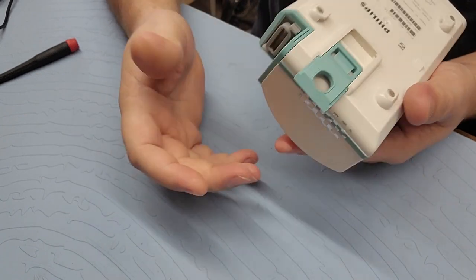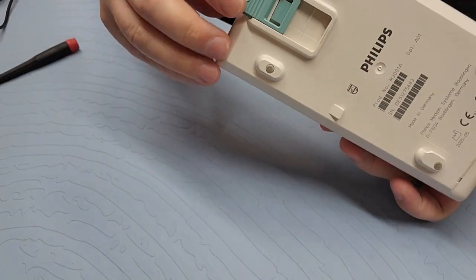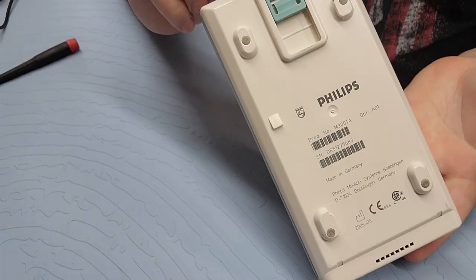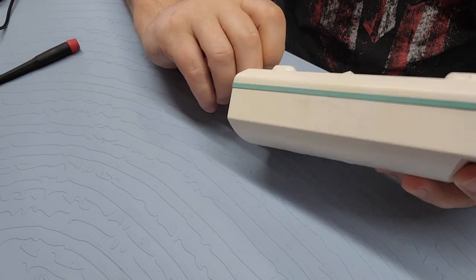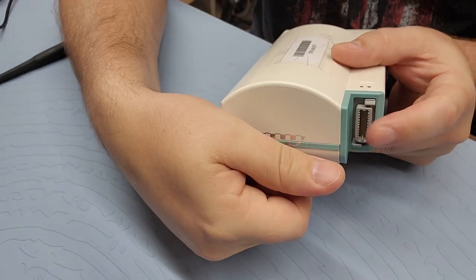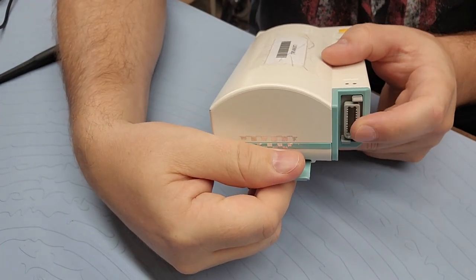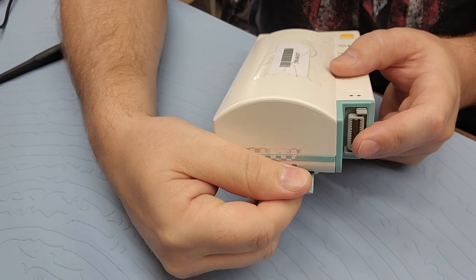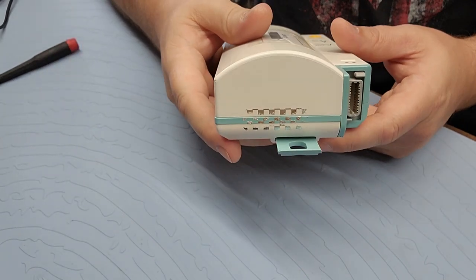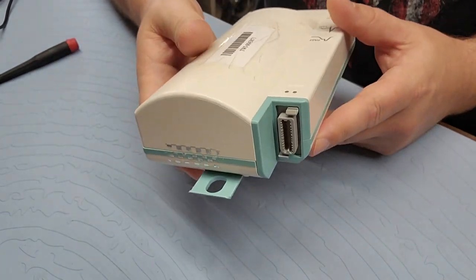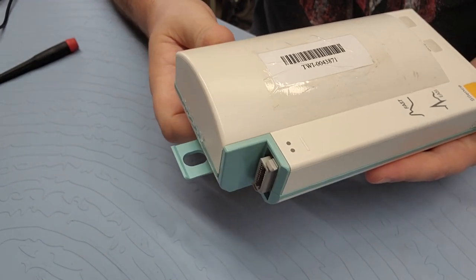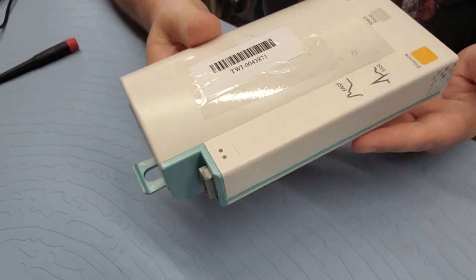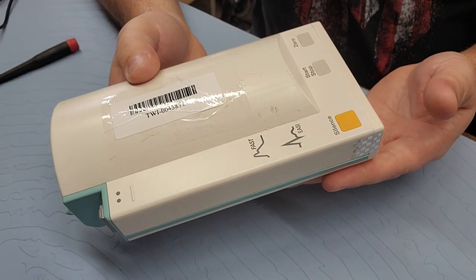It's got one option on the back that is to hang the whole entire brick and that's because you can also connect to this guy with an extension cable and that happens all the time in operating rooms. This unit will be remote from the anesthesia machine patient monitor so it can be closer to the patient.